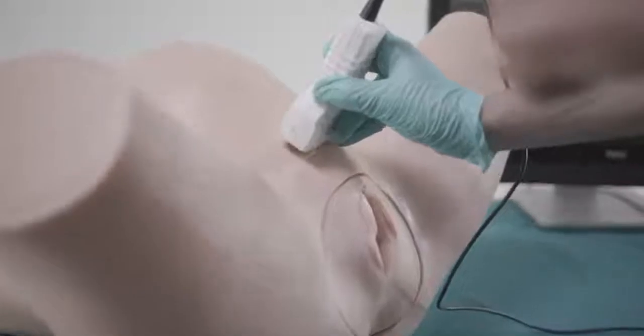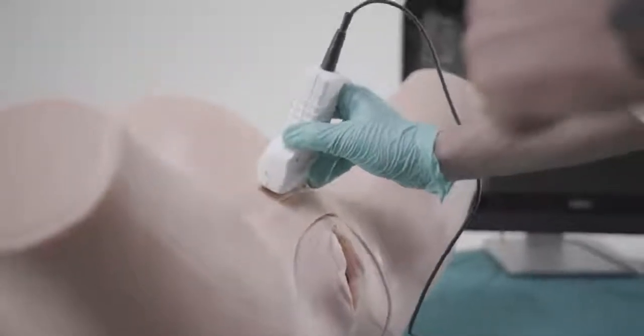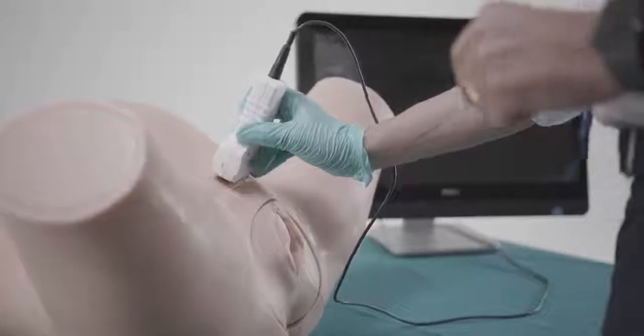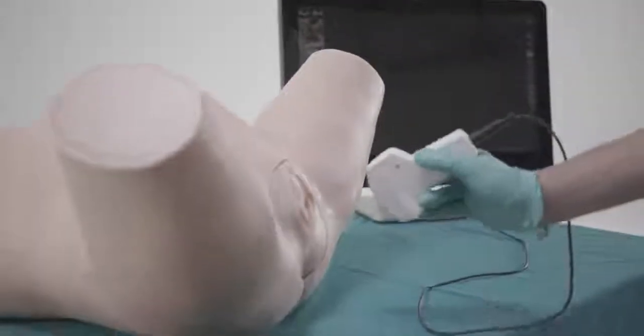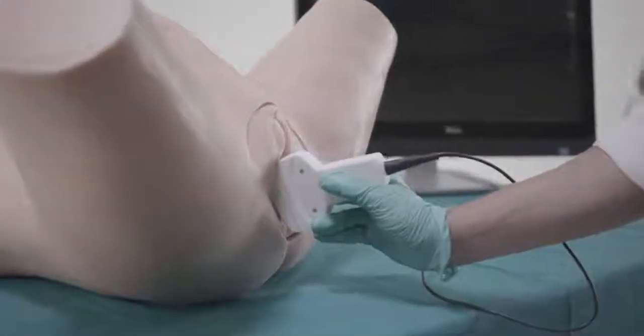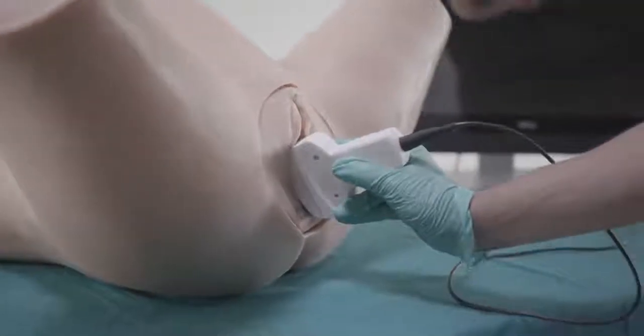The intrapartum sonography enables the objective measurement of birth progress and provides a more scientific basis for assessing labor. The correct use of ultrasound is of crucial importance in performing a safe operative delivery.